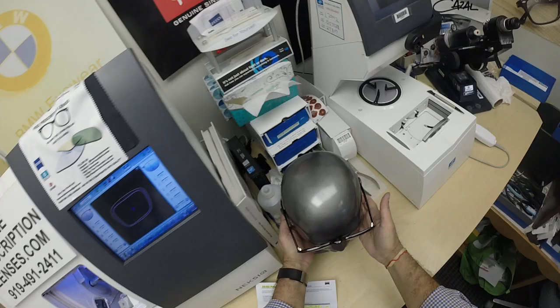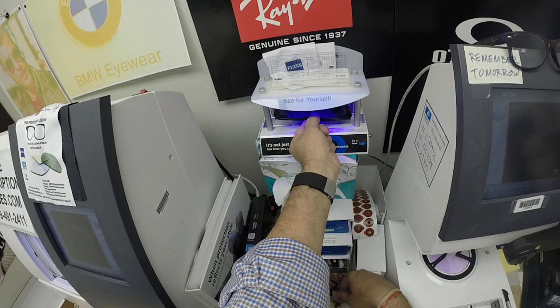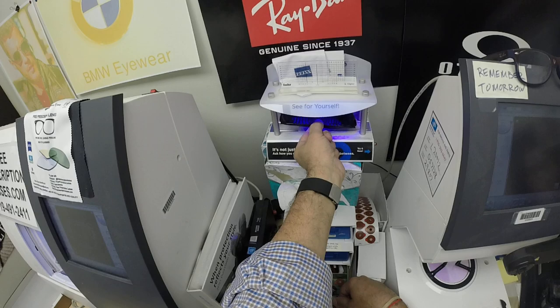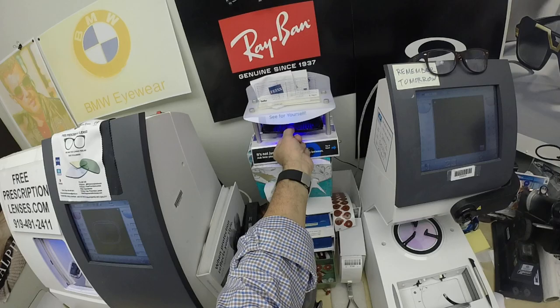I'm going to go ahead and expose them to a strong burst of ultraviolet light. Excuse me for repeating myself, but some people may be seeing this video for the first time. All photochromic lenses will turn dark on day one and continue to darken every day for the first couple of weeks when exposed to the sun. After that, they will work for years at maximum performance. The only time they won't work perfectly is if you're behind the windshield of a car — your windshield absorbs the sun's harmful ultraviolet rays, which is why they don't turn dark in a car.